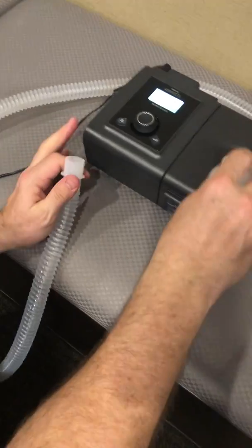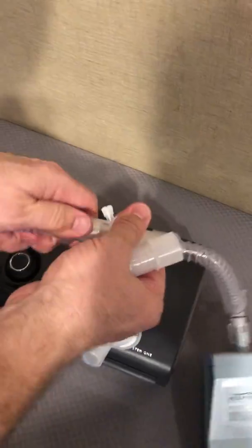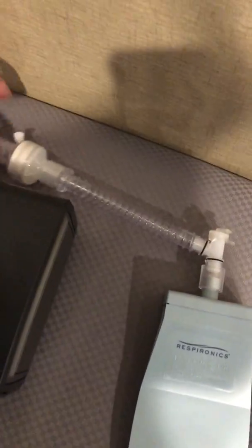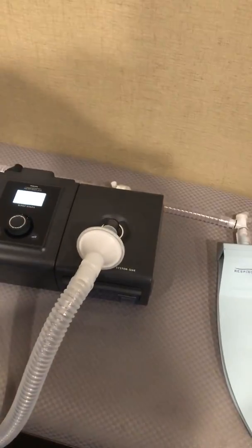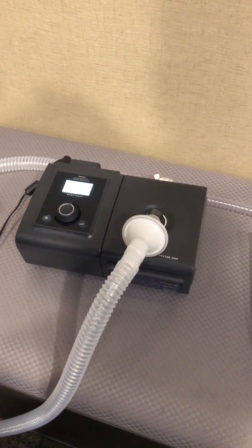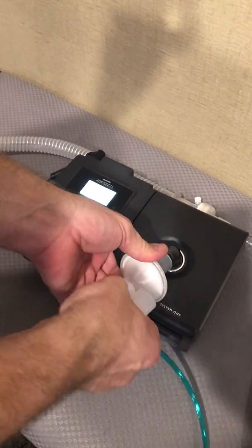So: bacteria filter; the main limb of the circuit is a six-foot circuit — it comes apart here; it has the exhalation port built in; it connects to the HME and onto the trach flex adapter, and then we're all set. Again, BiPAP with AVAPS, with a passive circuit. Now, obviously we're missing one very vital component, which is the oxygen bleed-in, so I'm going to put that in line for demonstration purposes.